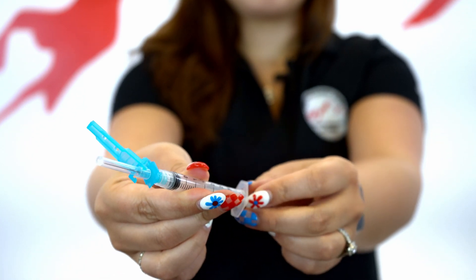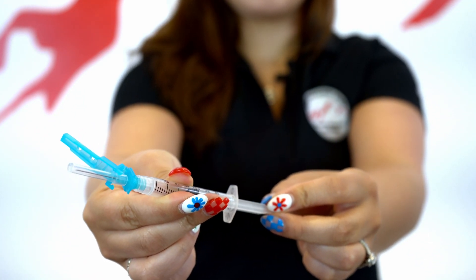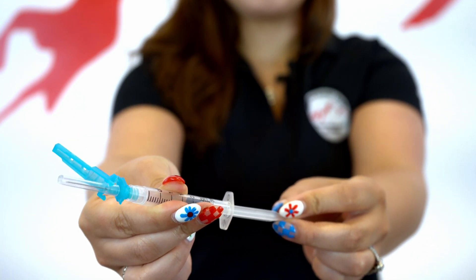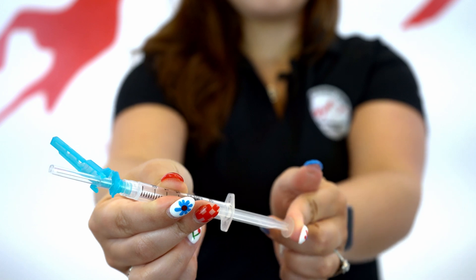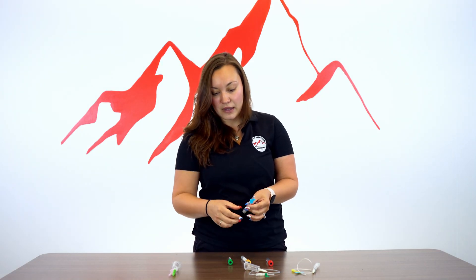After the evacuated tube system, we have what's called the hypodermic needle. This is a needle on a syringe that allows for manual pressure to be applied, rather than vacuum tube pressure.